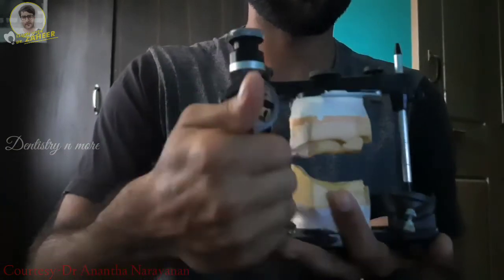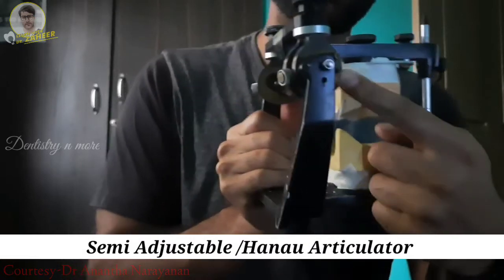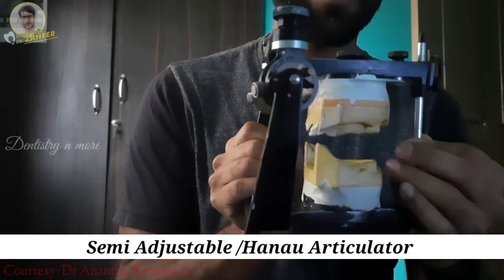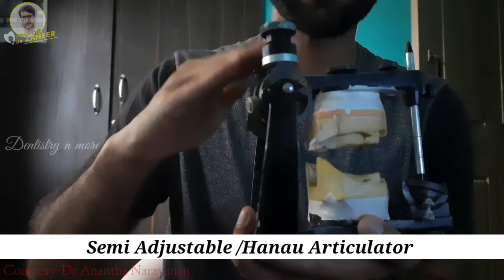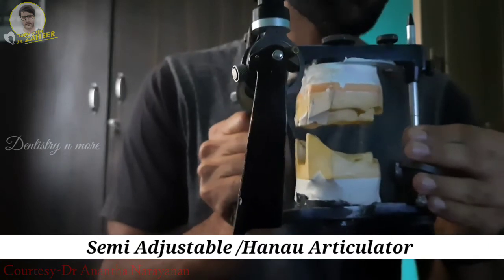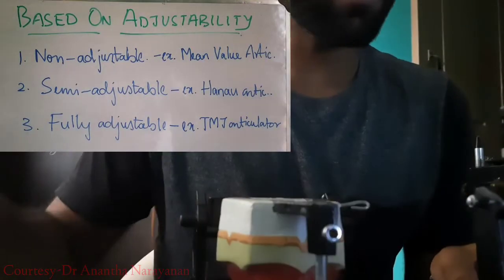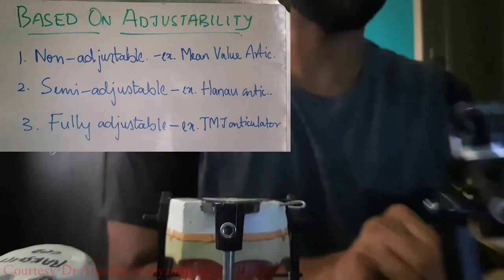This other articulator is called a semi-adjustable articulator or a Hanau wide-view articulator. It is called semi-adjustable because the condylar element you see here can be adjusted according to the patient's values. As we go on, we will differentiate between the semi-adjustable and the fully adjustable articulator. In a fully adjustable articulator, the condylar element can be adjusted in all three dimensions. So classifying by adjustability: non-adjustable, semi-adjustable, and fully adjustable.